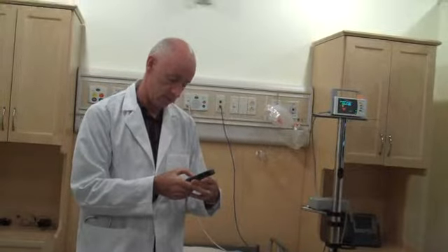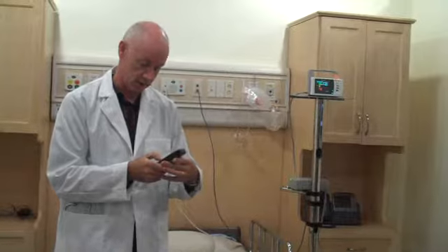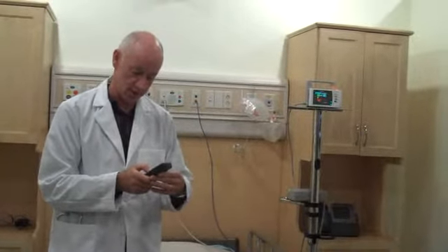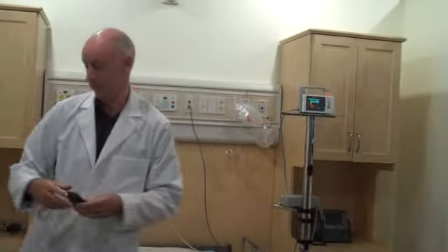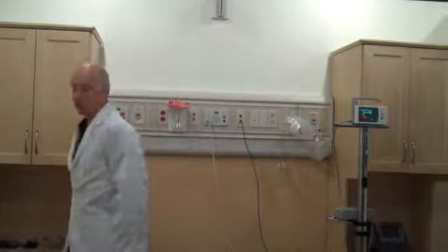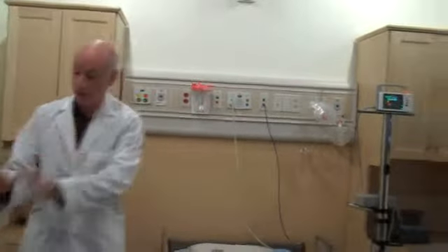I'll just ack that. Oops. I'll ack that or it's going to keep going. You have to acknowledge it. And it'll just keep ringing and ringing until I say, okay, I'm coming. If you don't, it will keep bothering you until you acknowledge it, or you go to the room and hit the button and say, yes, I've satisfied this request. And yeah, that's me coming to the room to cancel that. So you've been able to see now that instead of everything being funneled through the central nurse station, we're able to go directly to the person who's going to respond to that call for assistance.